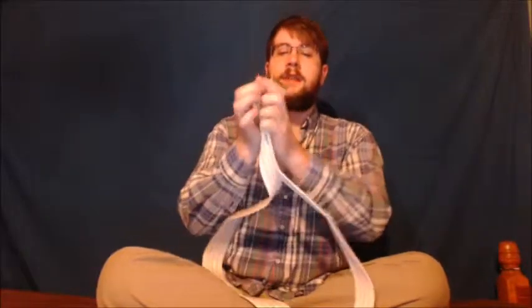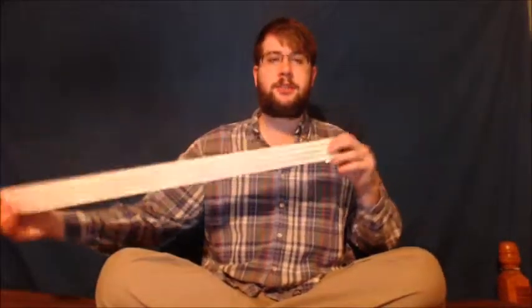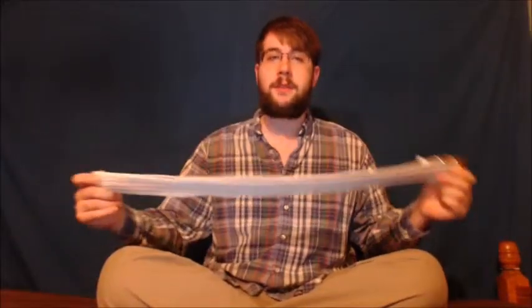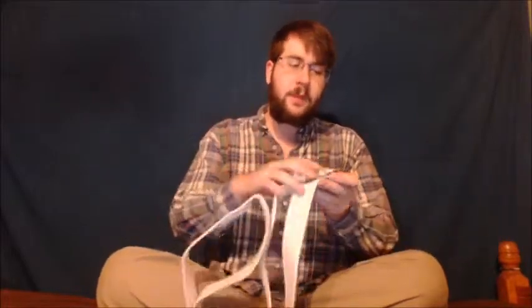It will help take some of that strain off of you while still giving you a proper physical therapy session. The buckle has a side with teeth that grab onto the fabric of the belt and hold it in place.